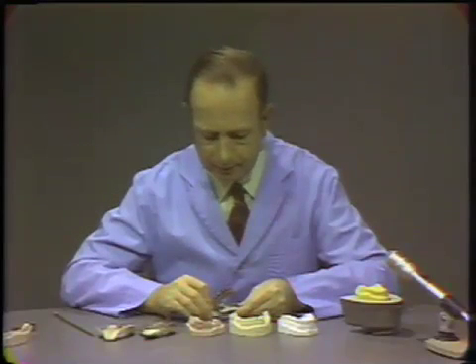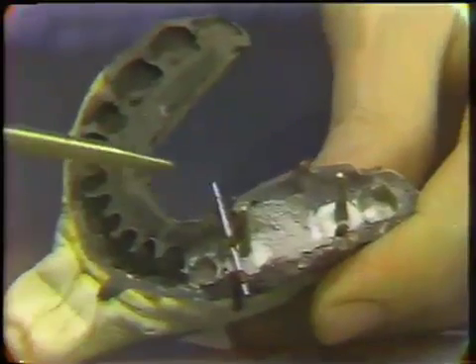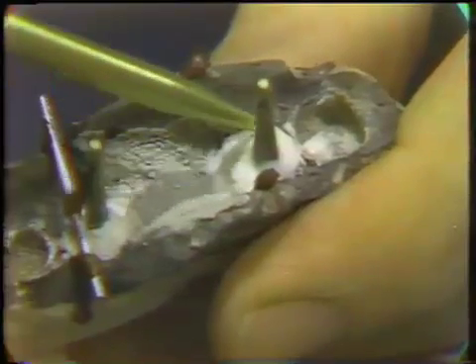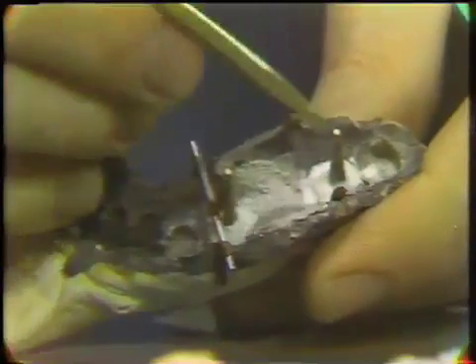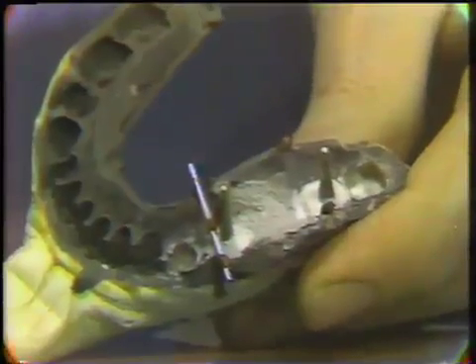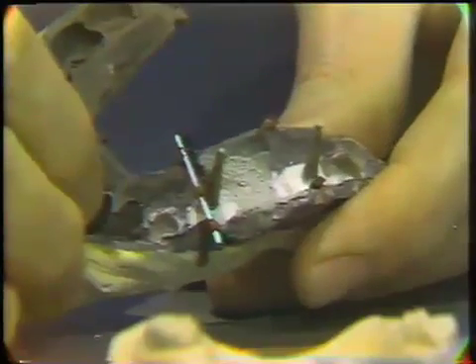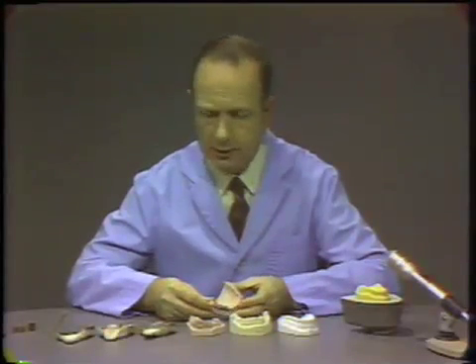What is necessary then is to fill up the remaining portion of the impression with an additional material. We've taken essentially a metal post and embedded it in the area of the tooth with acrylic resin — the same with this particular tooth — so that we now have two posts embedded into the areas of the teeth we're interested in. We can lubricate the metal posts and go ahead and pour improved stone into this impression area.